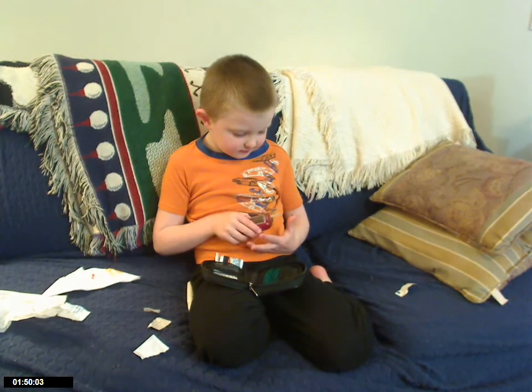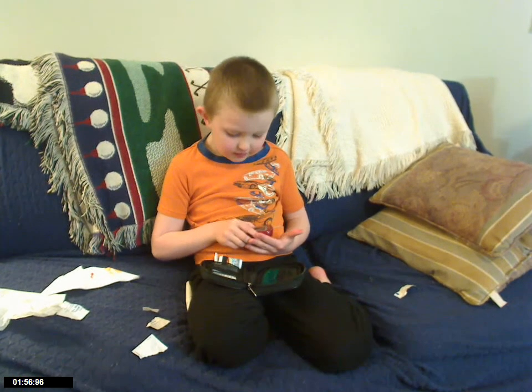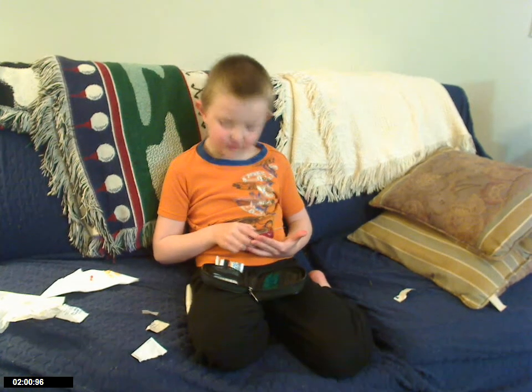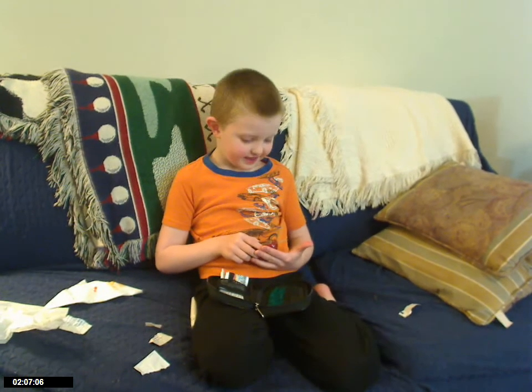We apply blood to the strip. And it's one hundred and thirty eight. One hundred and thirty eight? Yes. Is that good or bad? Good. Yeah, you're right. That's very good.